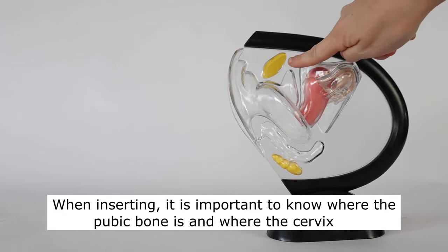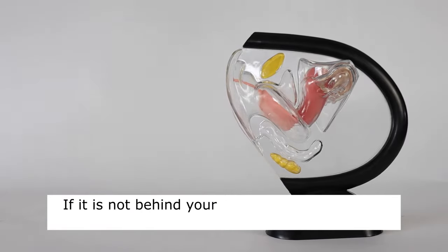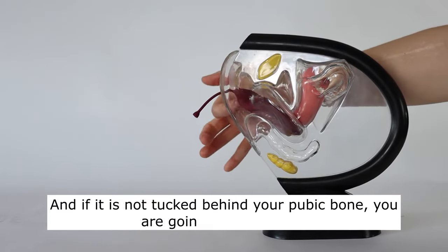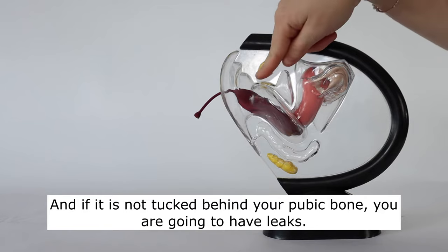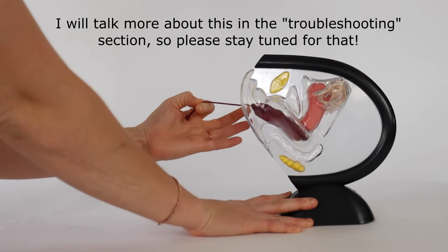When inserting it's really important to know where your pubic bone is and where your cervix is. If it's not behind your cervix you're gonna have leaks and if it's not tucked behind your pubic bone you're gonna have leaks. I will talk more about this in the troubleshooting section so please stay tuned for that.